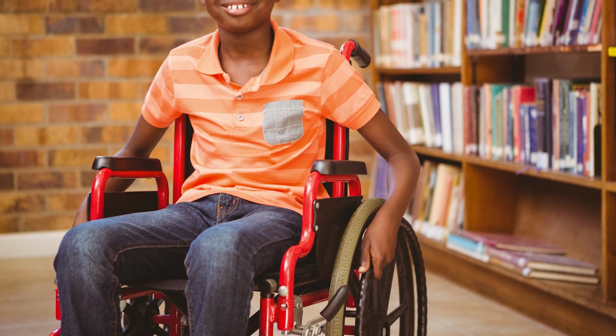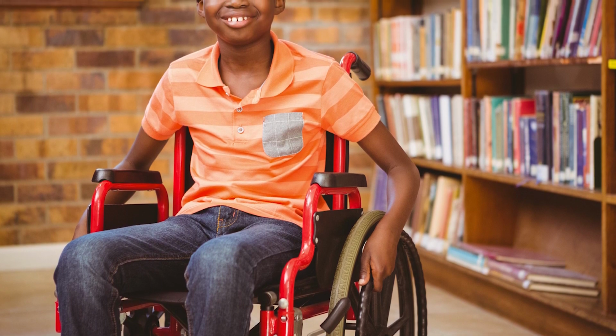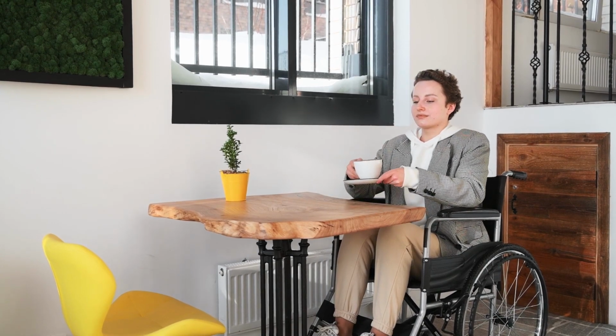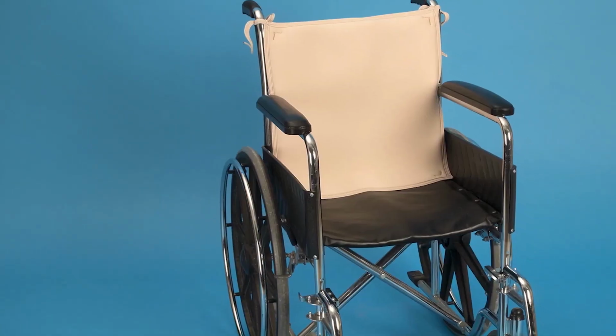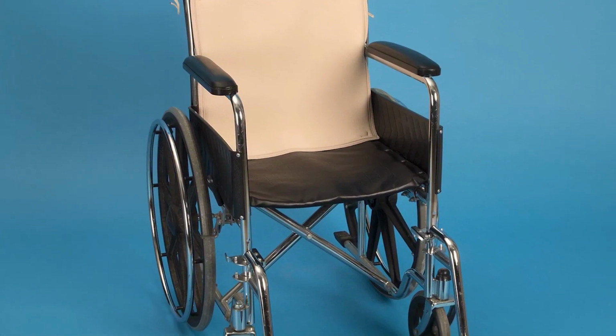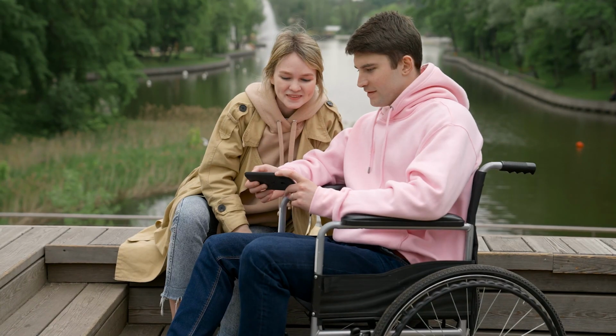Wheelchairs allow for completely independent use even if an individual is paralyzed from the waist down. If their arms are functional, a person can propel themselves without assistance. This is why wheelchairs are the superior choice in most environments. And for most people, the only time a transport chair is a better option is when navigating a narrow or hard-to-access area, or if the user has upper body weakness.